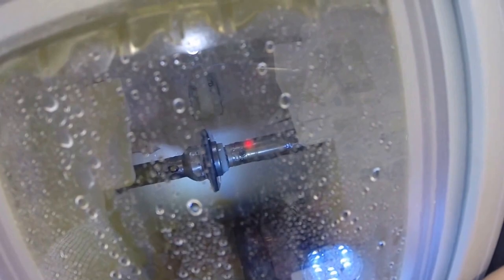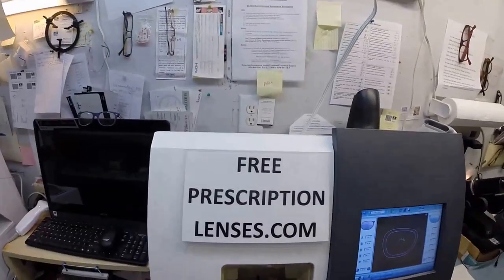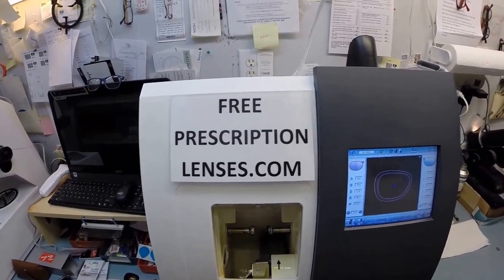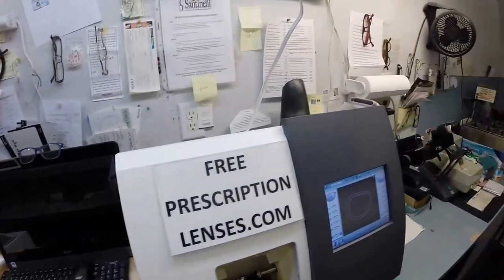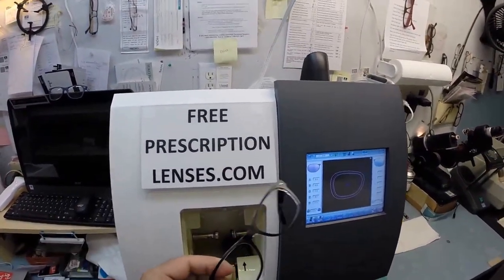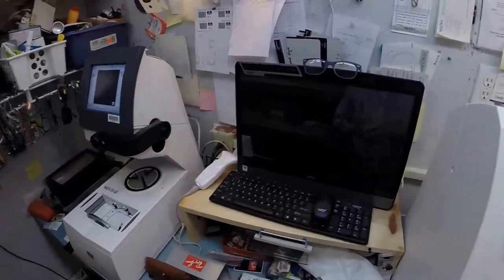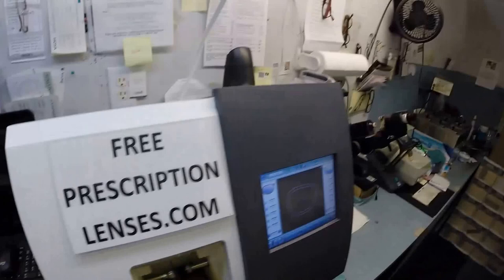What we missed is a little arm came out with a spinning wheel on the end - something you would find at the end of a Dremel tool - that is applying the safety bevel to the rear surface of the lens. So in just a moment let's go ahead and take your lens out and dry it off and we will see if it fits into your frame first time around. I'm a little bit skeptical of this frame. The 52 millimeter which I wore in most of my videos has a narrower bevel or less deep bevel than the 55. I usually have to cut these down a little bit more. This is not going into the frame so I'm going to take it down about a quarter of a millimeter.